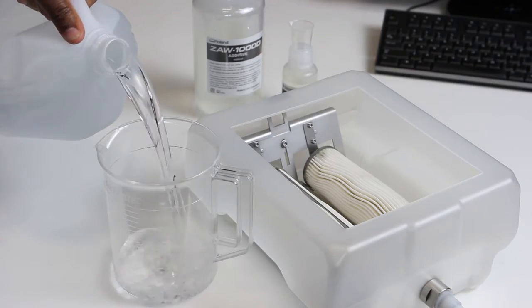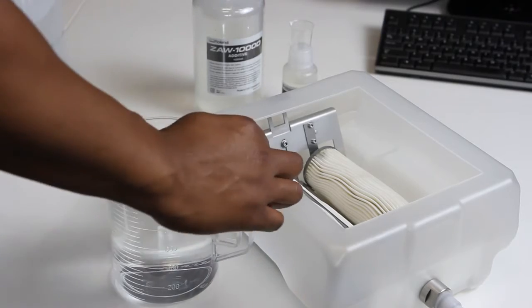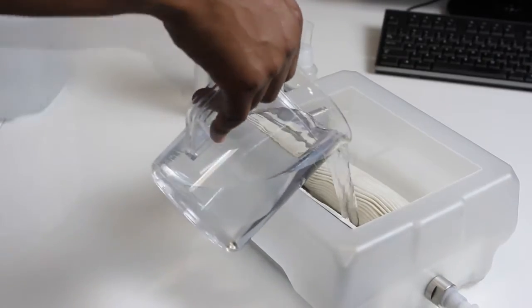To fill the coolant tank, you will need to use distilled water, coolant additive, and chelate agent. First, pour in 4,750 milliliters of distilled water.